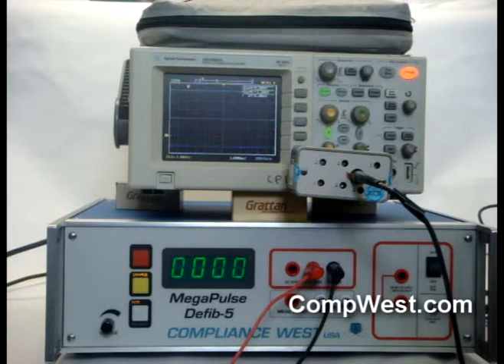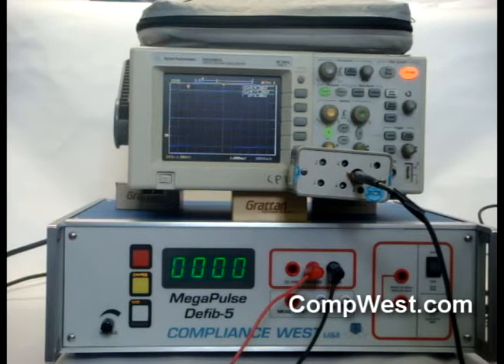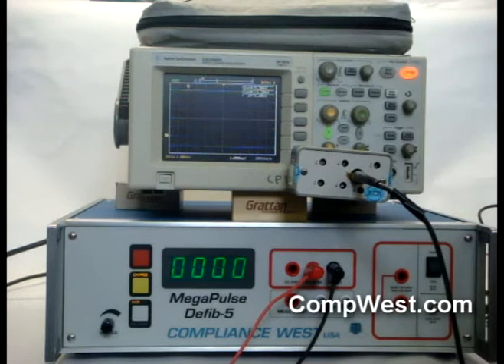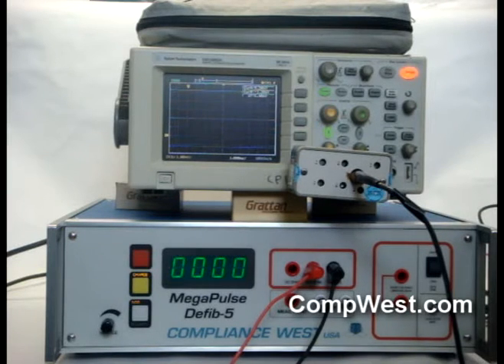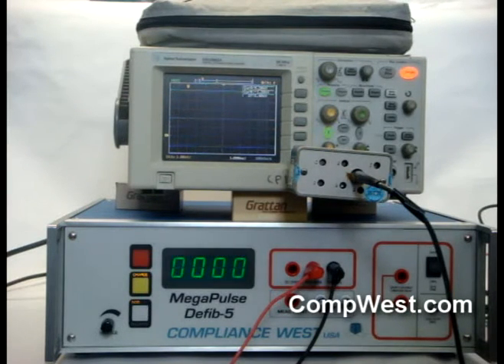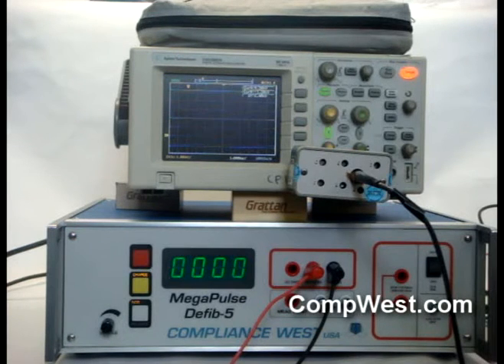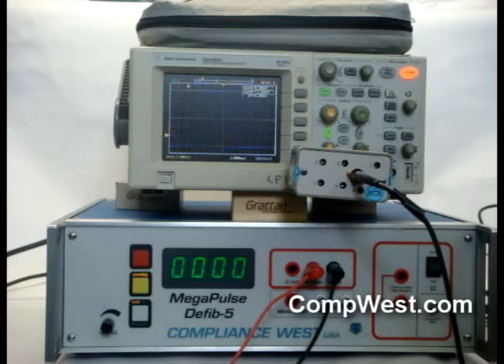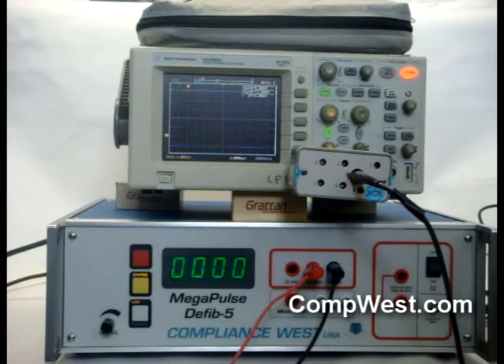We use a Tektronix P6015 1000:1 oscilloscope probe, which has sufficient frequency response to capture the waveform accurately. If you are using a different 1000:1 probe, please be sure it has a frequency response equivalent to the P6015 of 75 MHz minus 3 dB, and a minimum voltage rating of 5 kV.